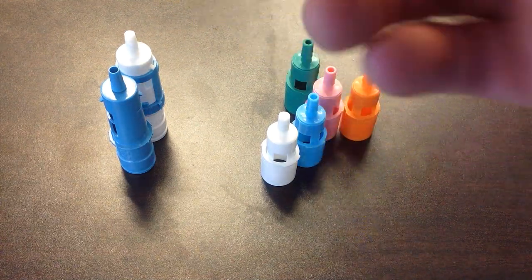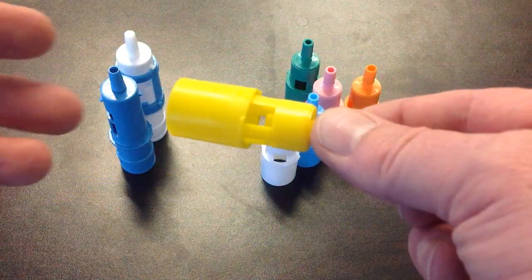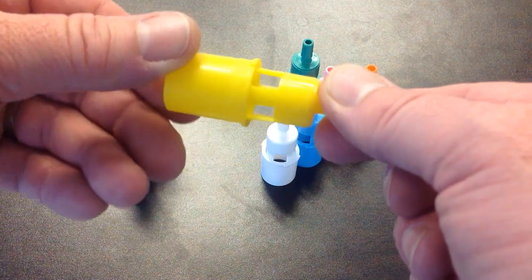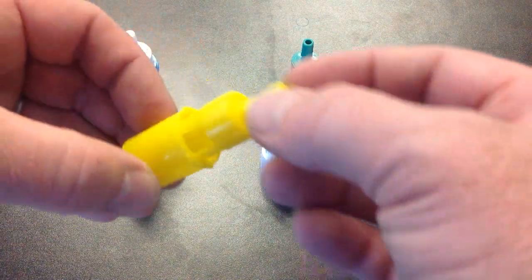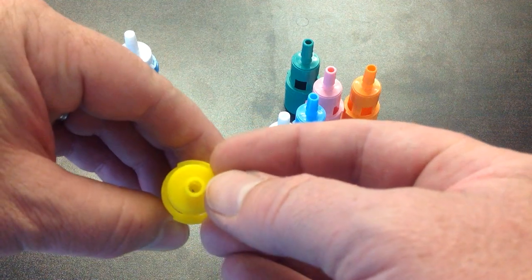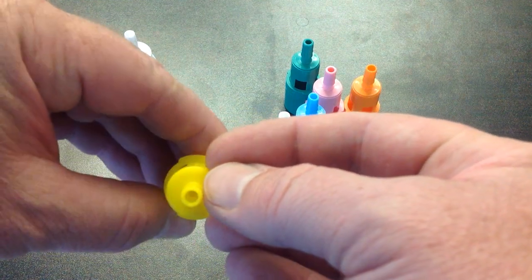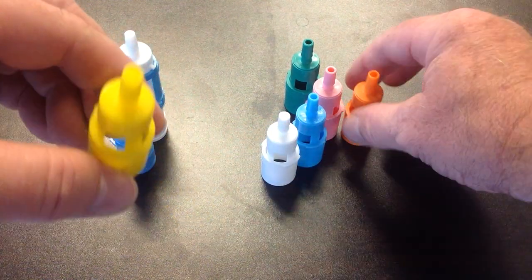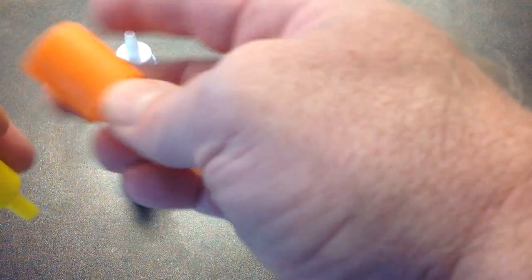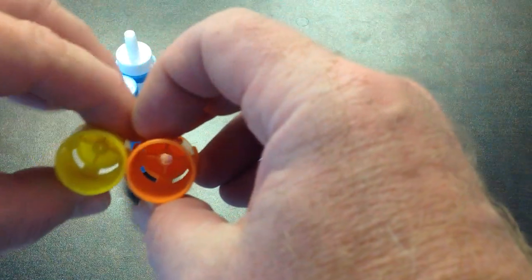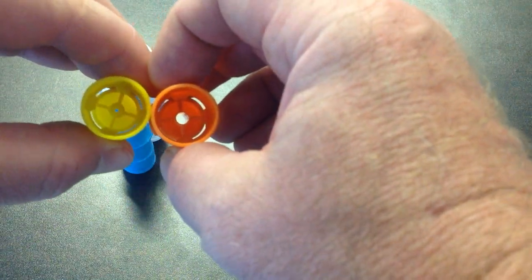In brief, if you see this port here, the ports there, here's the jet going through. You can see it creates a small orifice and if you look the different size oxygens have different size ports.